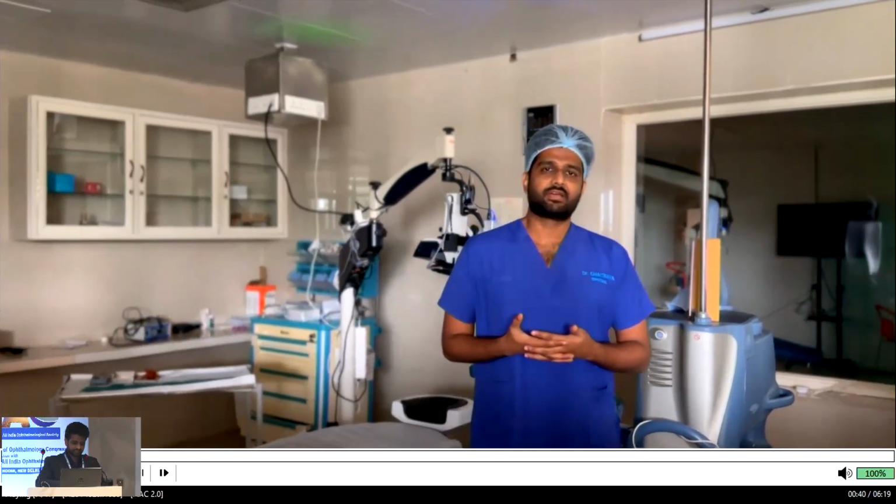Hi, staff. My name is Dr. Chaitanya Aravindankam. Today I am here to talk on the topic of surgical synergy, where you have a smart AI assistant as your OT assistant. The main problem with today's individual practitioners is your OT assistant might not be skilled, or you do not have enough OT assistants at the right moment.